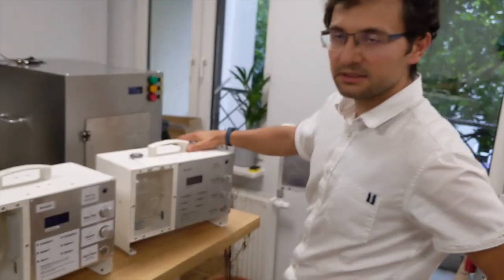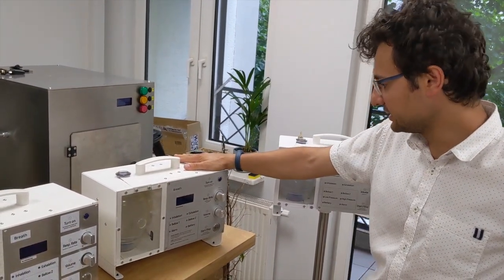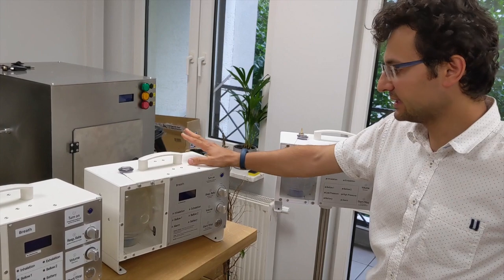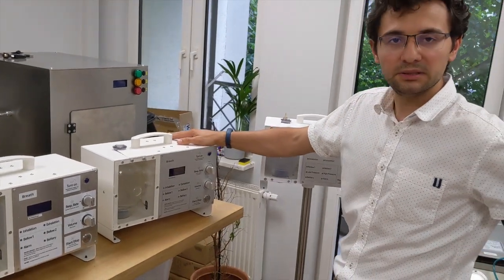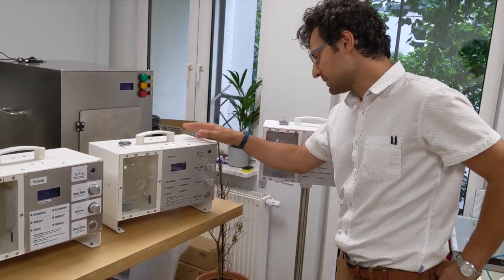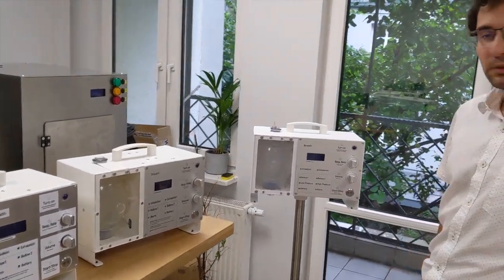And this was the next generation. This one was fully operated for the patient, and this one was the device that possibly could be used in the hospital. But using the time we wanted to make the last improvement.